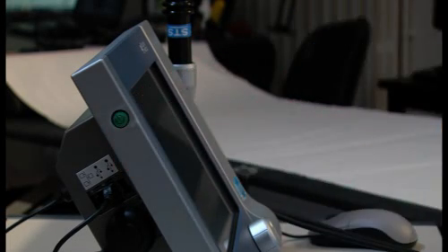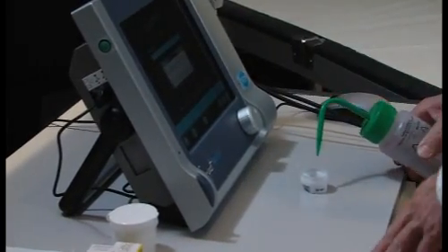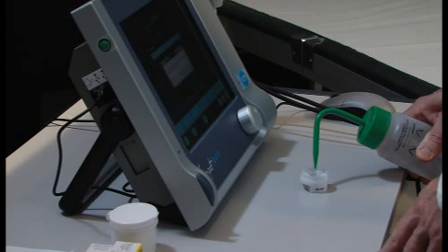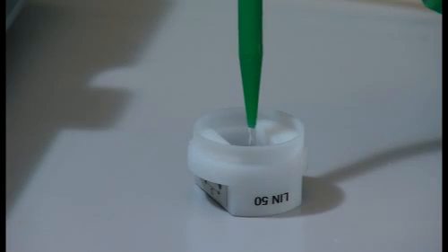The system is combined with a linear UBM probe developed by engineers at Quantel Medical. It can be used to take intraocular measurements accurately and automatically.